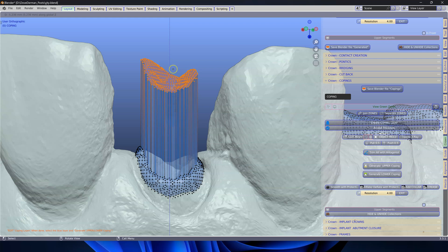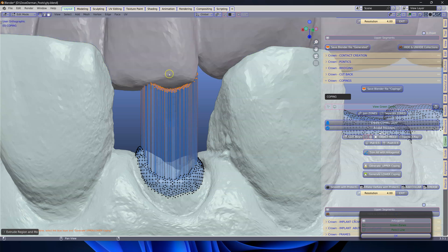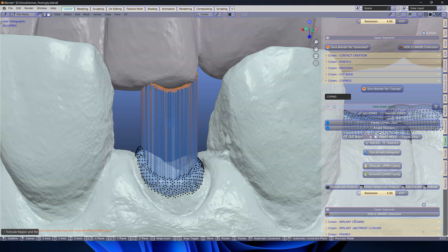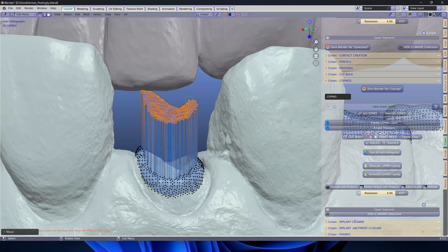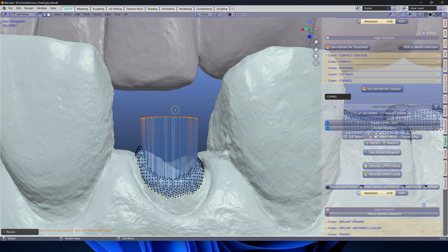But that's not good enough because I want to see where my antagonist is. So I'm going to look for my antagonist over here — it's two way up. I'm going to go GZ to grab. Then we're going to go S to scale, Z on the keyboard, 0 to flatten them out. Then GZ again to extrude them upwards.